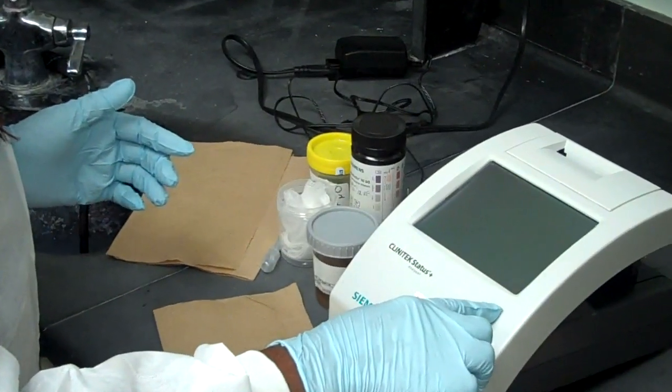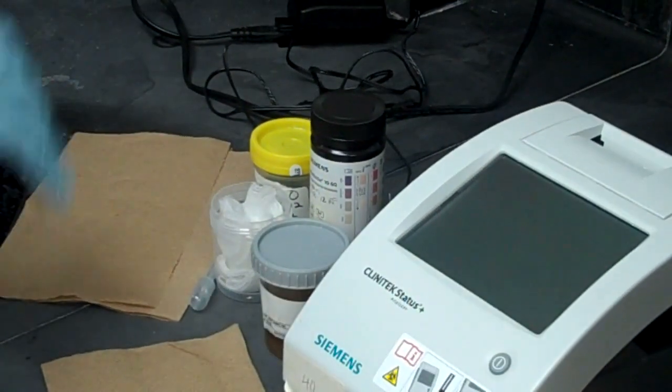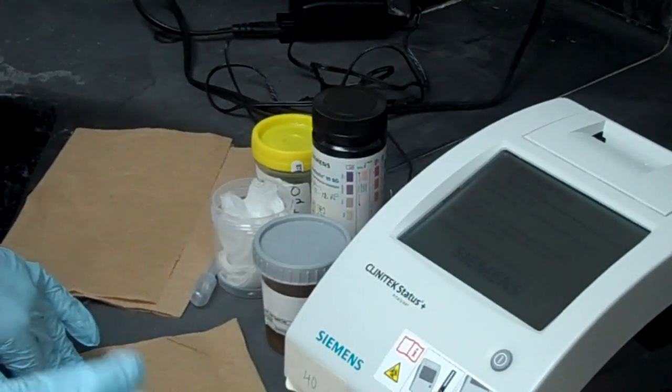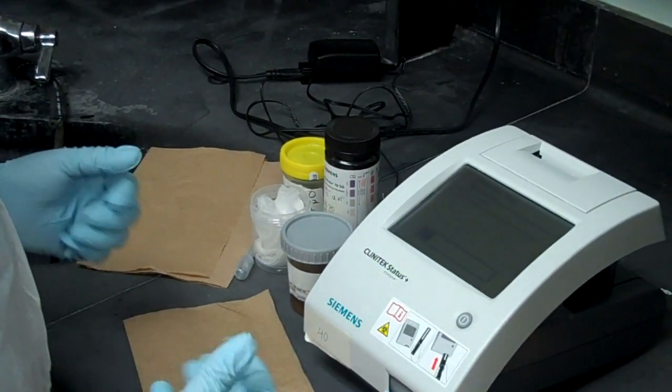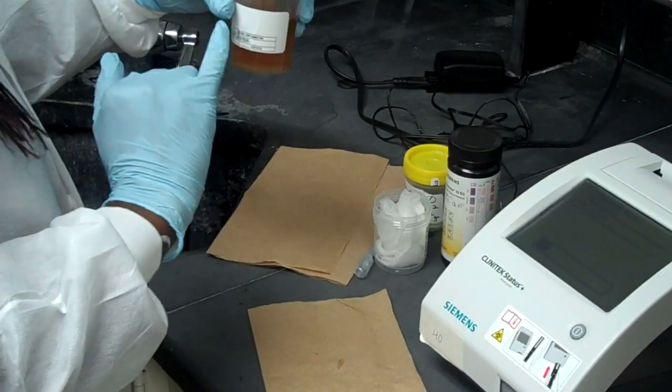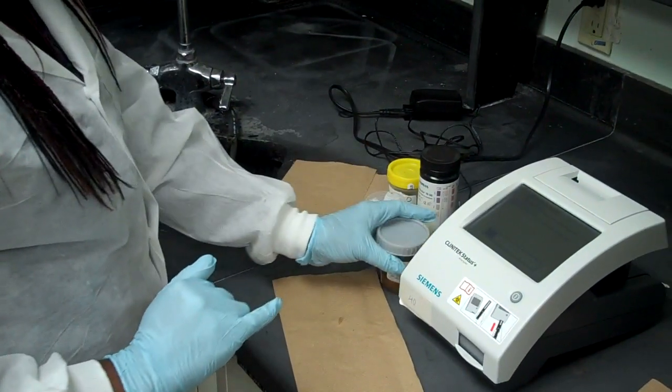We're going to turn on the analyzer. Press this button. It's just going to take a few seconds for this to warm up. So while that's happening, we make sure that a patient's sample has the patient's name and the patient's date of birth.